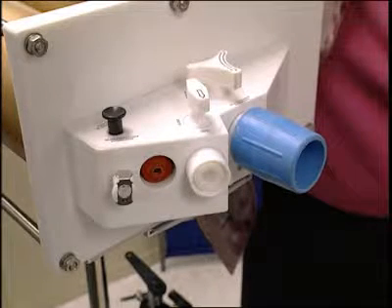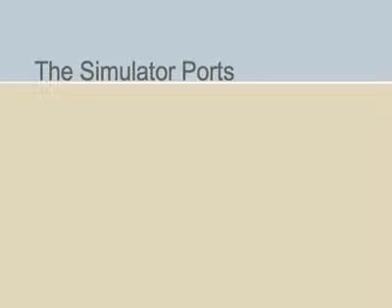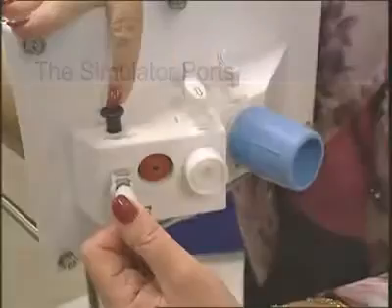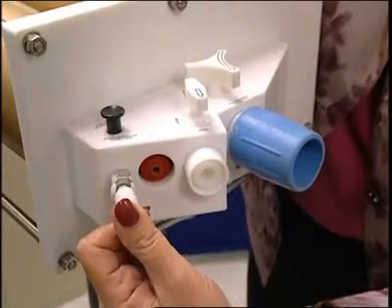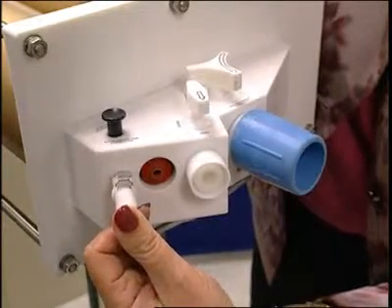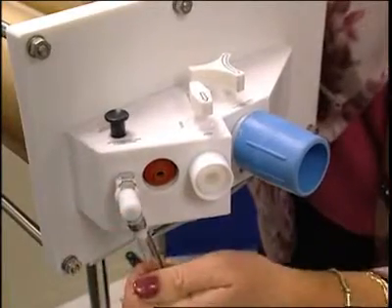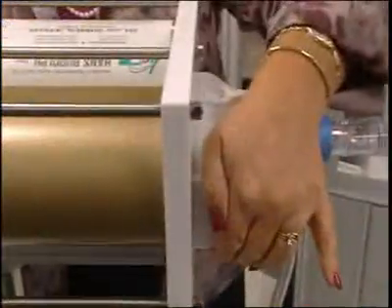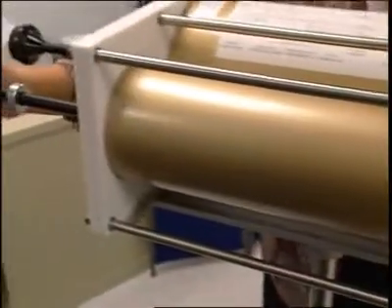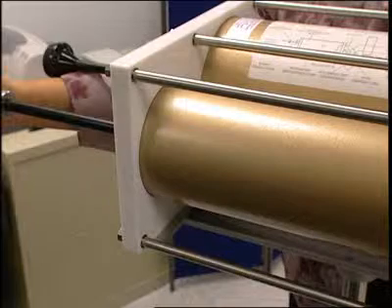On the end opposite the pistons, considered the front, is the manifold, which houses the simulator's three ports and three valves. The gas connection port is off to one side, directly below a black push-button valve. The wording "standardized gas connection" is imprinted on the manifold near the port. The port itself, equipped with a quick-connect fitting, is where we've already attached the regulator tubing assembly. It is through this tubing that the simulated alveolar gas is delivered to the small syringe, flushing and filling the syringe at various stages of the testing.